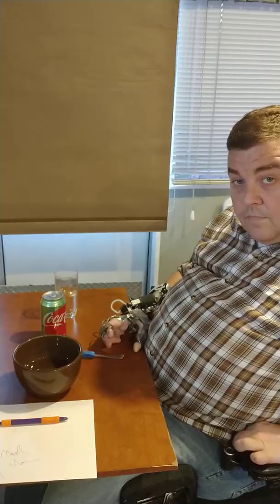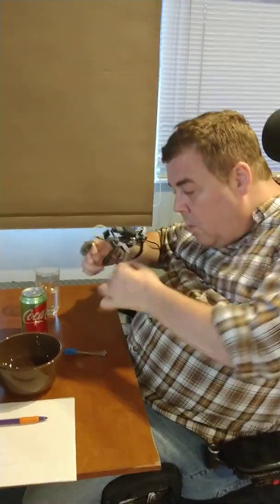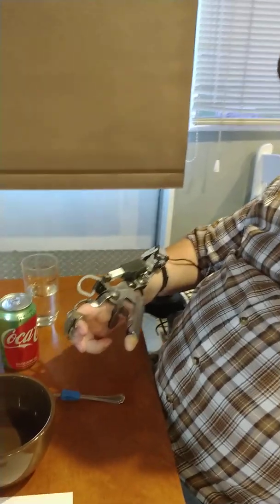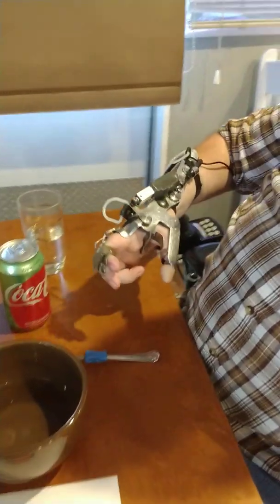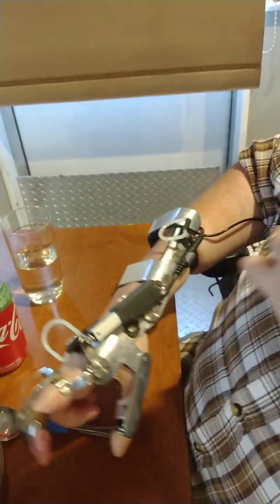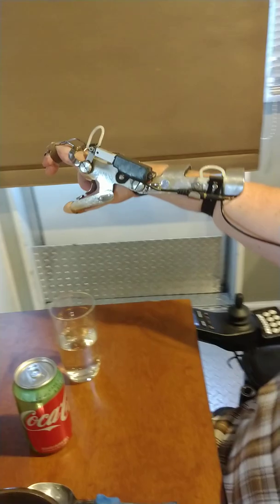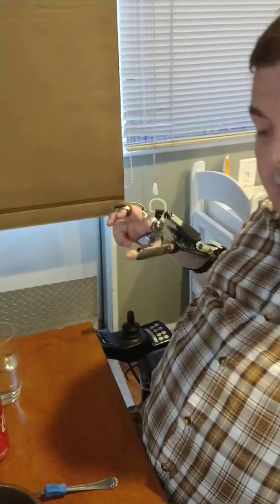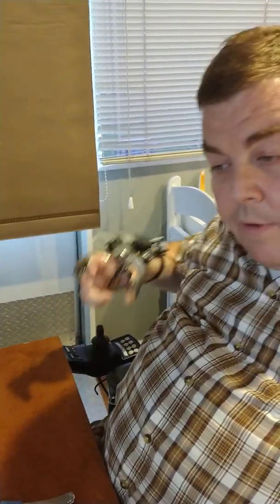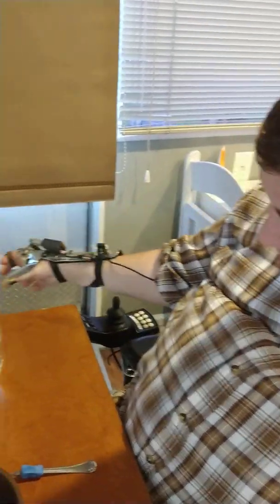Carla helped me put the power grip on, but one thing to note is I've used this for 15 years or more, 17 years. So I'm an expert. It's finely tuned and adjusted for me. One of the differences now, we run the wire up the inside of the sleeve, down the person's shirt and plugs into the controller. So that's out of the way rather than wearing it on the arm. One less thing, a little bit less to get caught.